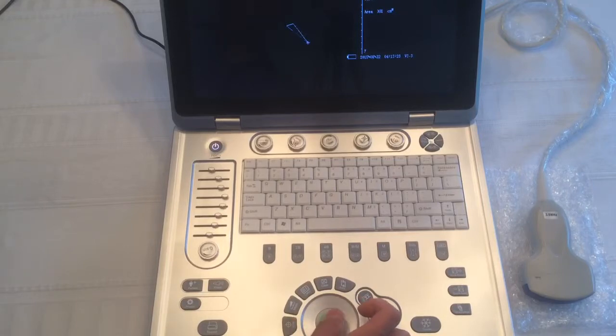Okay, and then you go to a third position, enter. You have to press hard. Oops. Okay. Well, that didn't work out well, but there it is. It's a triangle. And basically, you just have to create the circumference with the enters here, and it will give you an area.